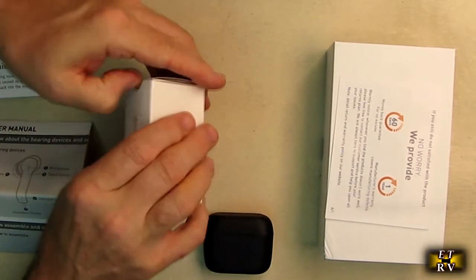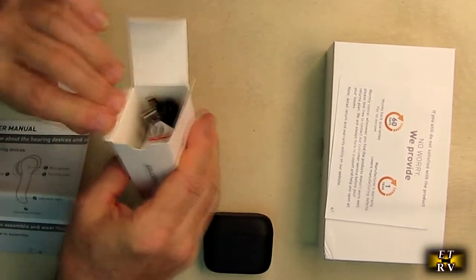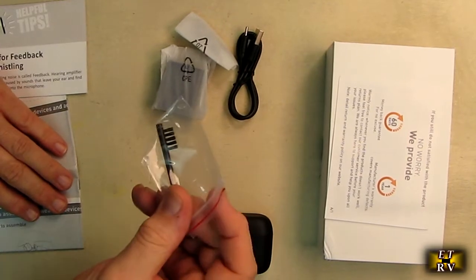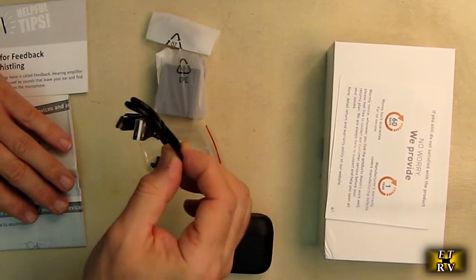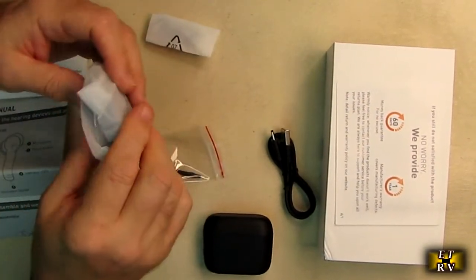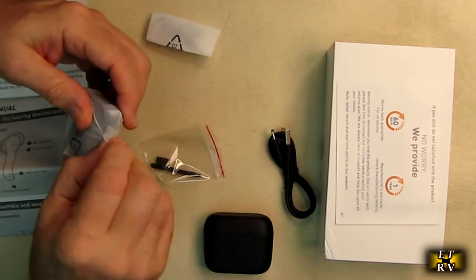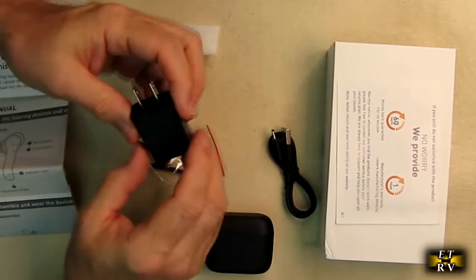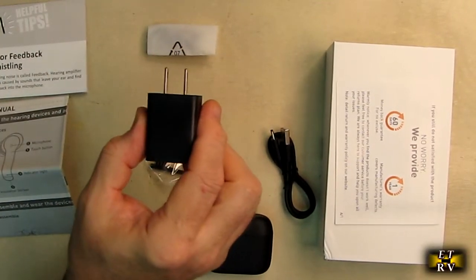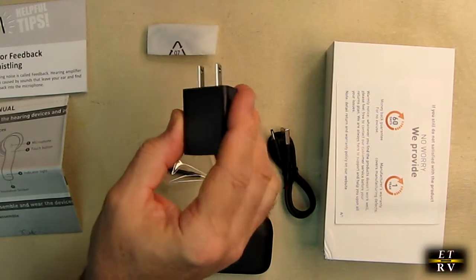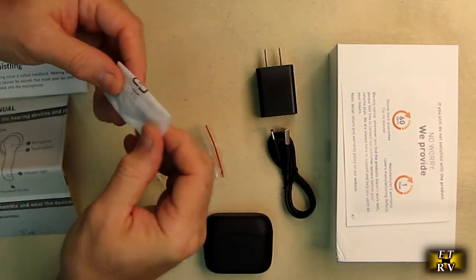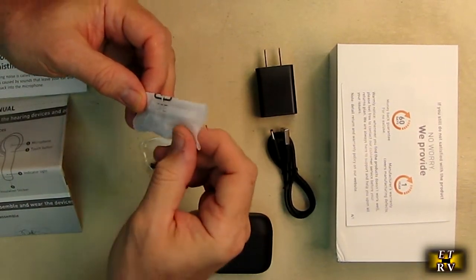I see a little cleaning brush, USB-A to USB-C charging cable, and wrapped in plastic is a 120-volt to USB-A adapter. It's nice that they provide that—a lot of companies don't anymore. Then they have some extra earpieces so you can replace those if they get worn out.